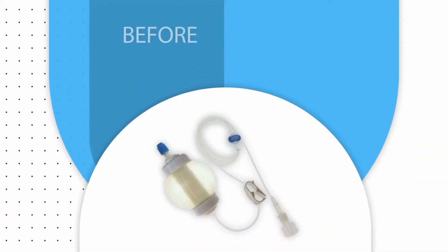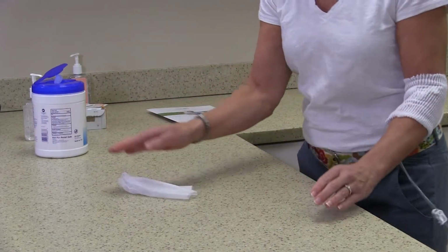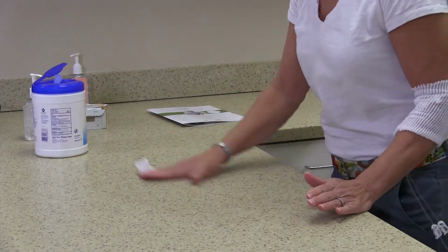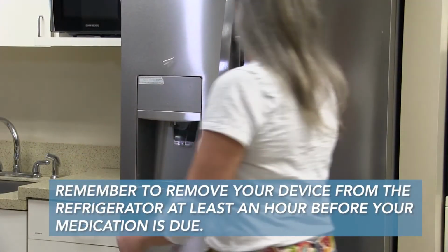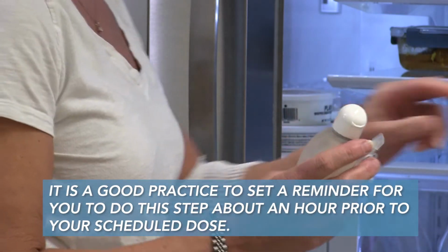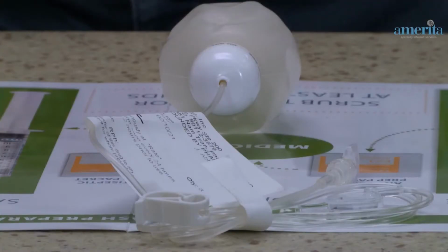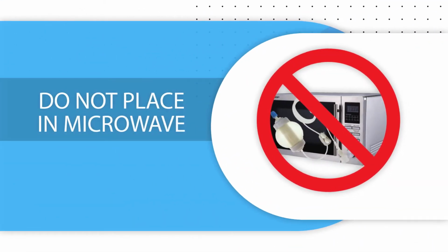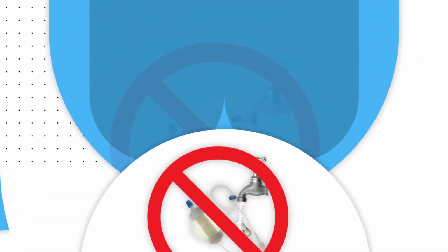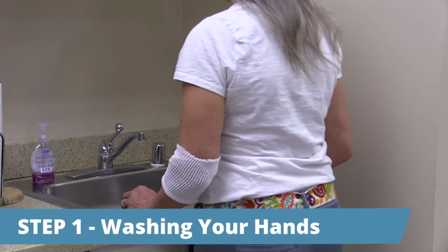Before you begin your infusion, you should clean your hard surface or SASH mat, as shown here. If your medication is refrigerated, remove it at least 1 hour before administration and place it on the clean SASH mat or surface area. Do not put this medication in the microwave or run warm water over the device to hurry up the process.